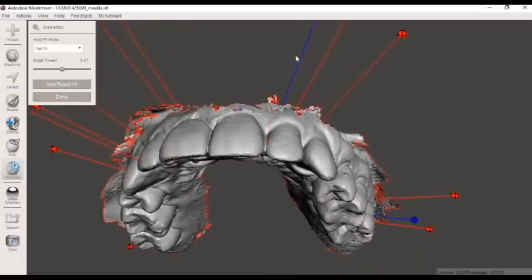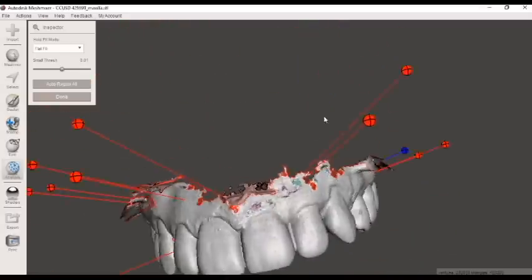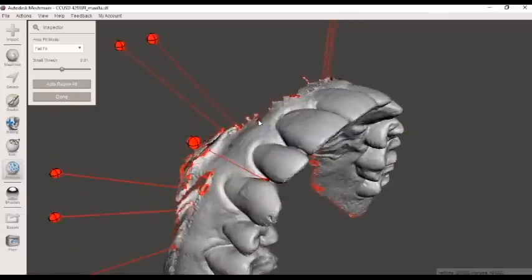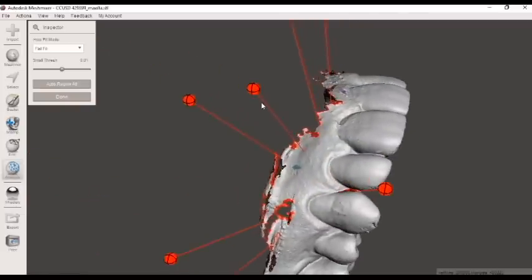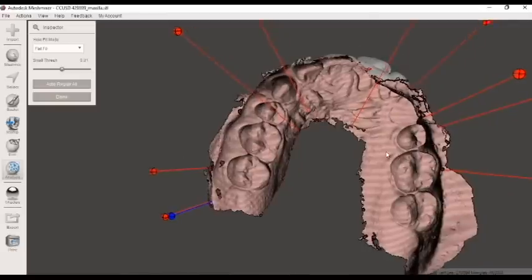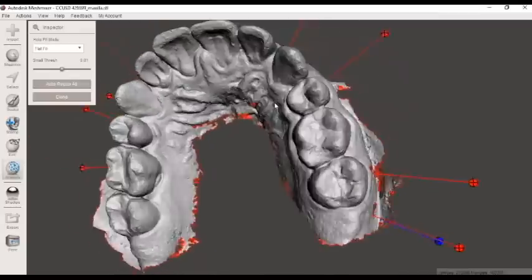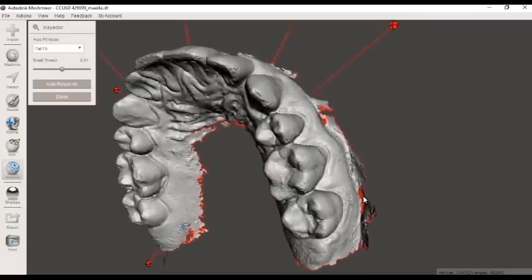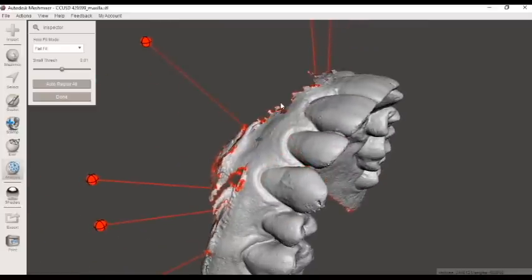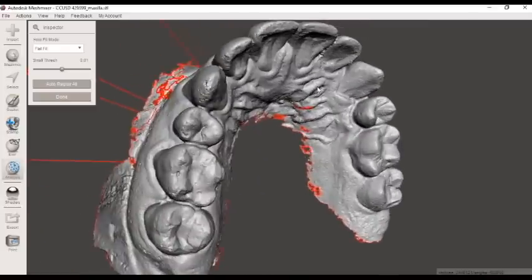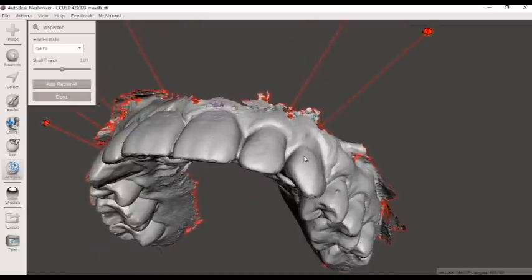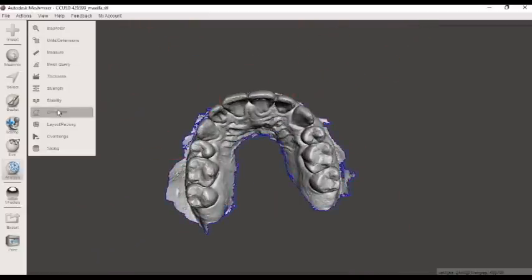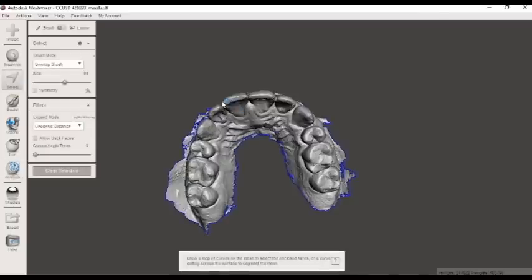Now what I'm avoiding is, see this red line? It's our boundary throughout the whole part. I don't want to fill that boundary because then it'll take up this whole space here and try and fill it in. So I'm just going to get what I know are real holes. Since this outline is in red, I'm going to avoid any of these red bubbles out here. That looks good for now.